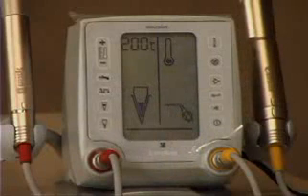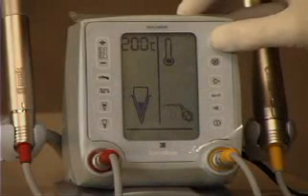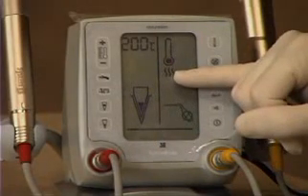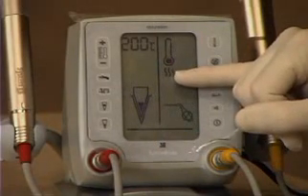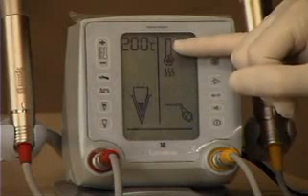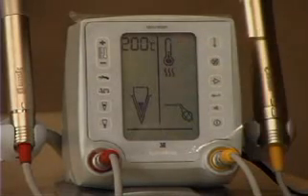Now we're ready to heat the gutta percha in the cartridge. Pushing the upper right button starts the heating icons. You're going to see in a very short period of time the thermometer going up in heat. When it reaches the top, the extruder will be ready to go.